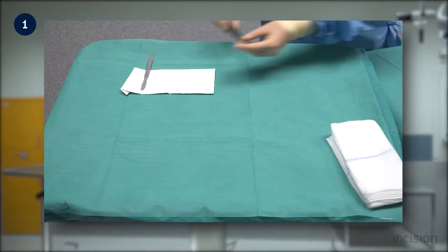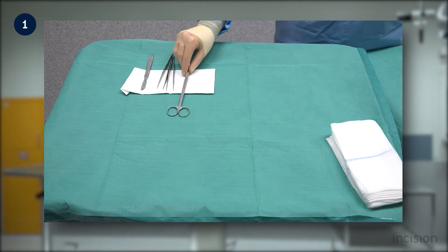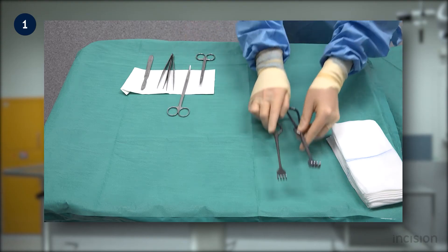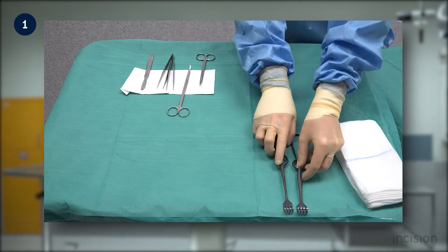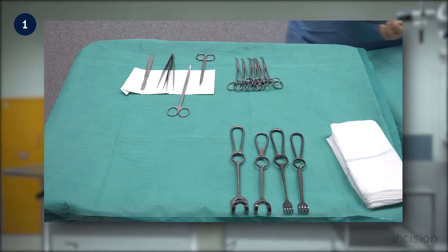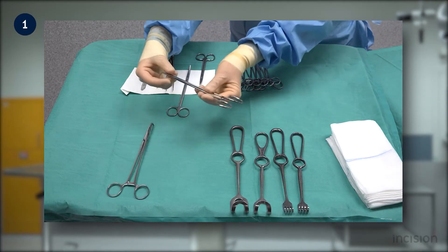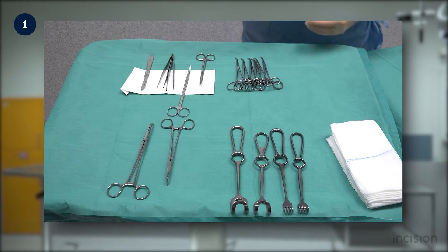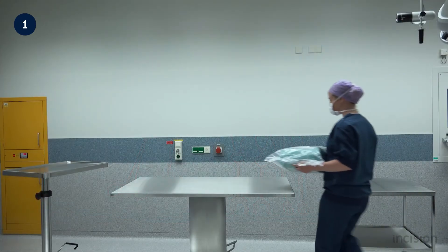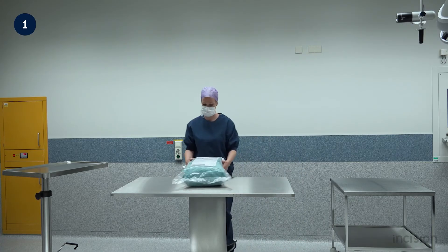The objective remains to set up a sterile field on which surgical instruments and implements can be accessed during a procedure. In setting up, the aim should be to move economically and to set instruments and implements in a manner that is logical and safe for reach and access during the procedure.